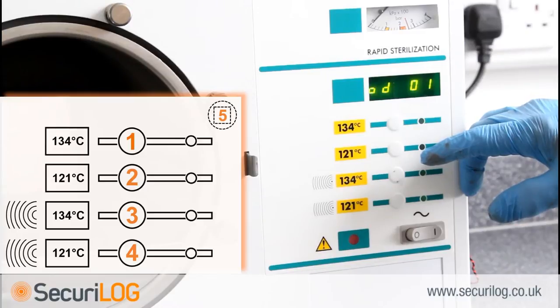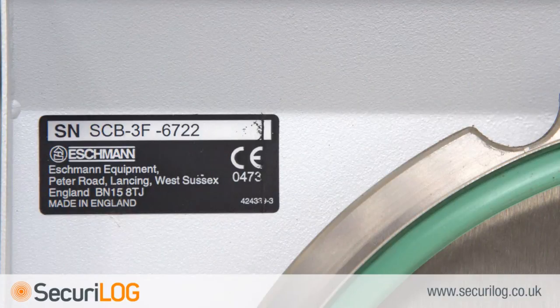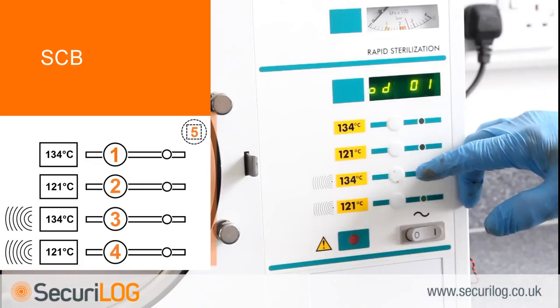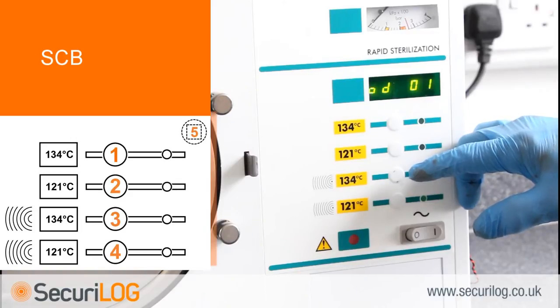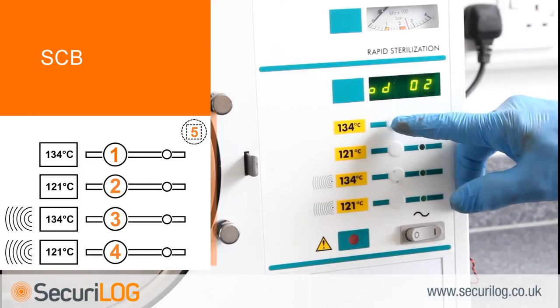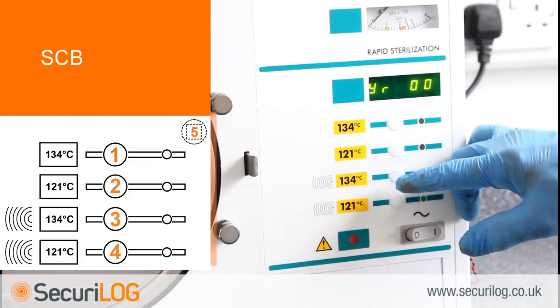The machine serial number must now be set. The autoclave serial number — found on the data plate on the inside of the autoclave door and on the back of the autoclave cover — comprises four parts. The first part is the modification state, made up of three letters; however, only the third letter is used. The letter is set up by a two digit number: A is 01 through to Z at 26. With the display reading OD01, press button 1 to begin selecting the required number. Button 1 increases the number, button 2 decreases it. When the number corresponds to the last letter of the modification state, press 3 to select. The display will now read YR00.